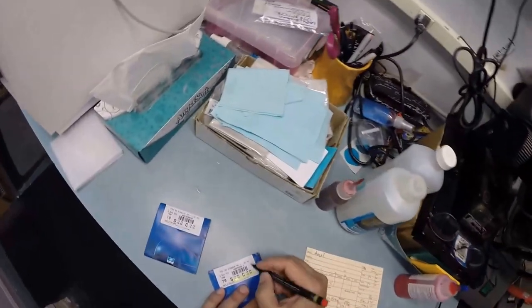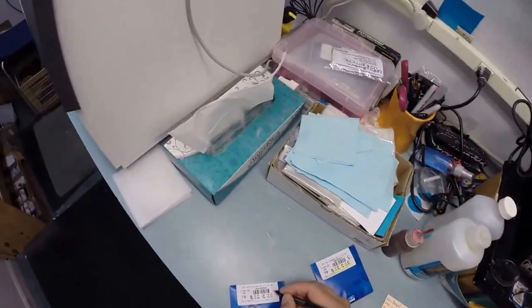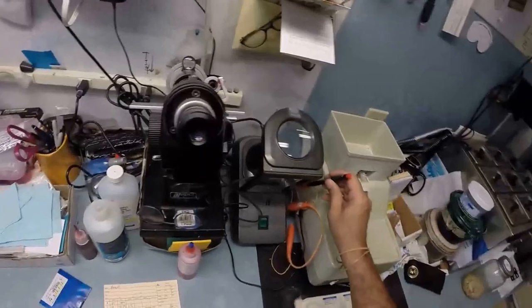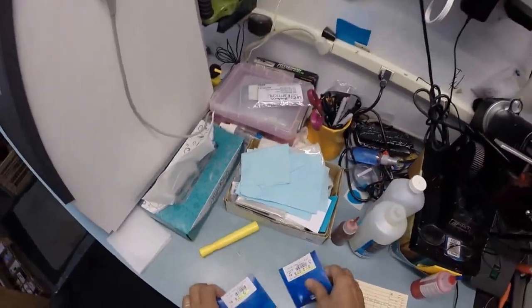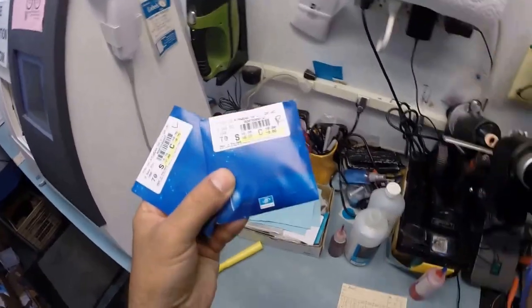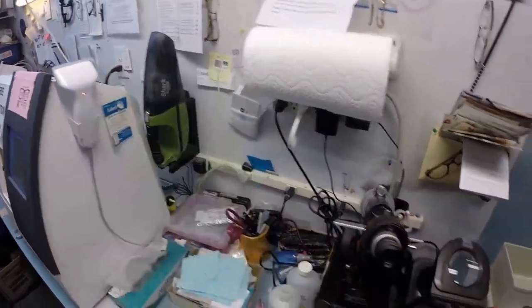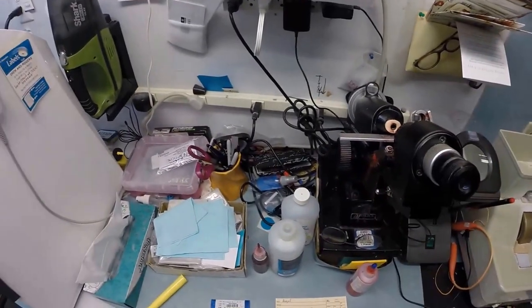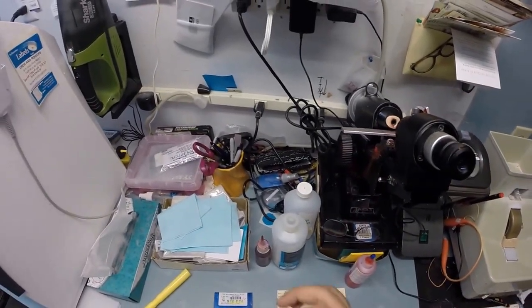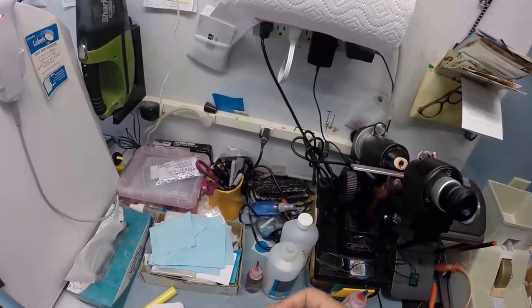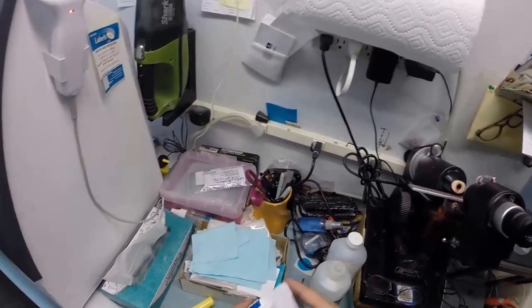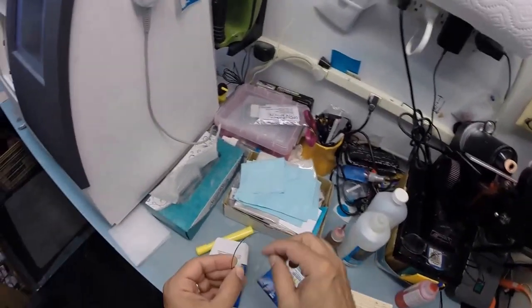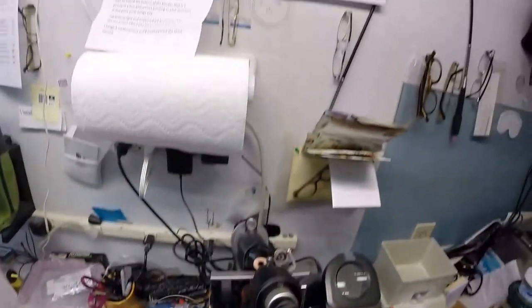Your right eye is plano, which means no prescription whatsoever. Let's go ahead and mark that as the right lens. Making this one the left lens. I always highlight the prescription for you to see it, because you are going to receive all the manufacturer's original packaging including the lenses, so you know that you are getting the Essilor brand lenses.